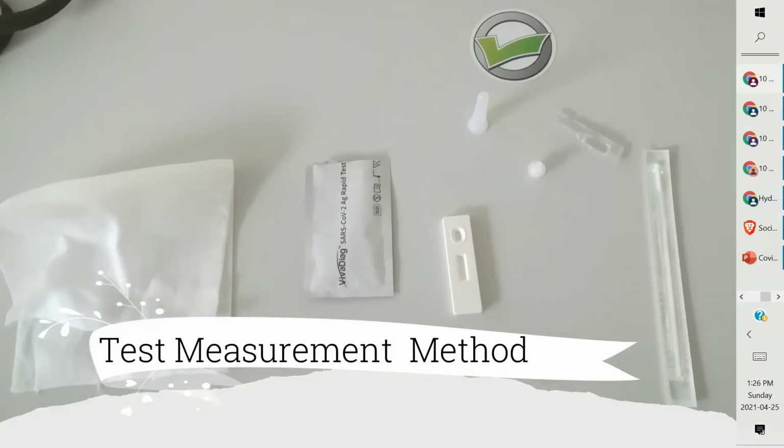The saliva antigen rapid test kit is composed of one test kit, one tube, one fluid, and one strip. Four things. Okay, and this is a strip. This is a fluid in which you need to stir up your saliva, and this is a tube where you need to pour this fluid, and this is the cover of this tube, and this one is the test kit.